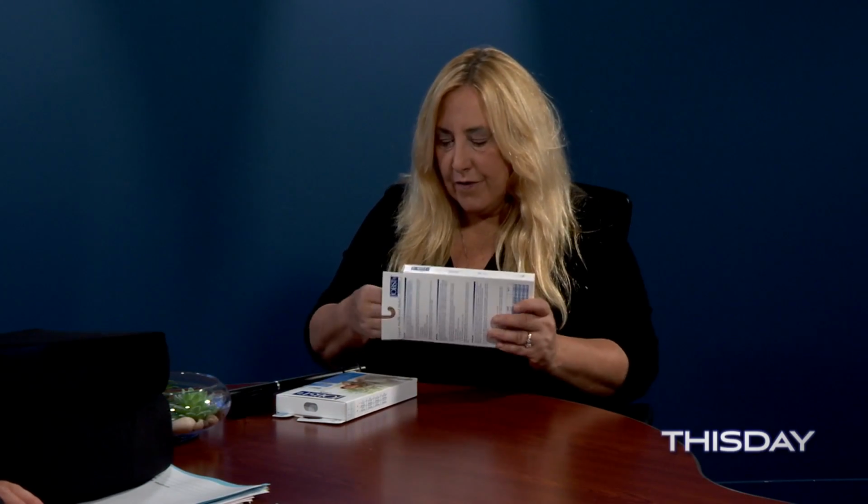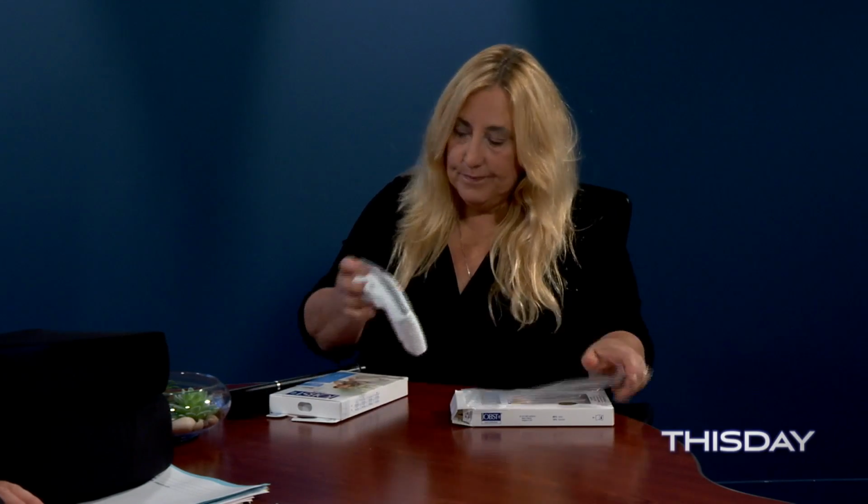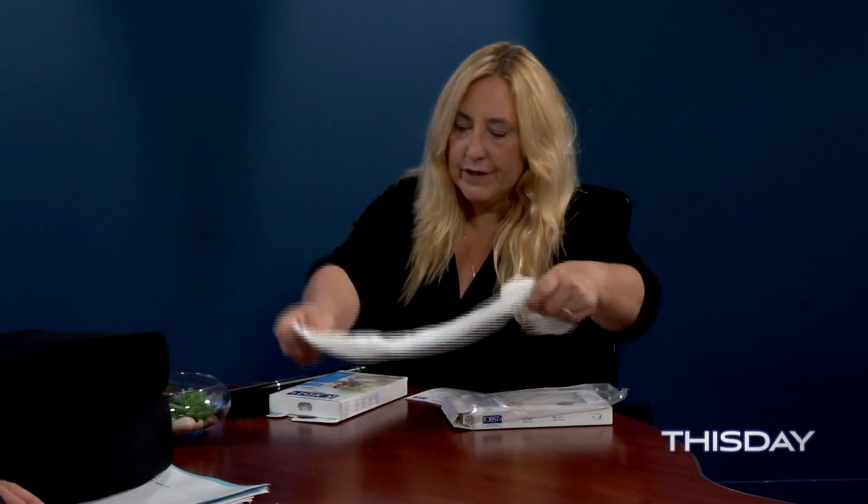And if you think about when you're in the hospital, what are you doing? Most of the time you're lying down, right? You're not up and walking, or if you're up and walking, you're probably not walking very far, thus being in the hospital. So these are the white ones that everybody wears in the hospital. They're made for wearing when you're lying down. They look similar to the other ones, but they're made of a little bit of a different material. And they have one compression. They're about 18 millimeters of mercury, which means it's the pressure pressing on the outside of your leg.